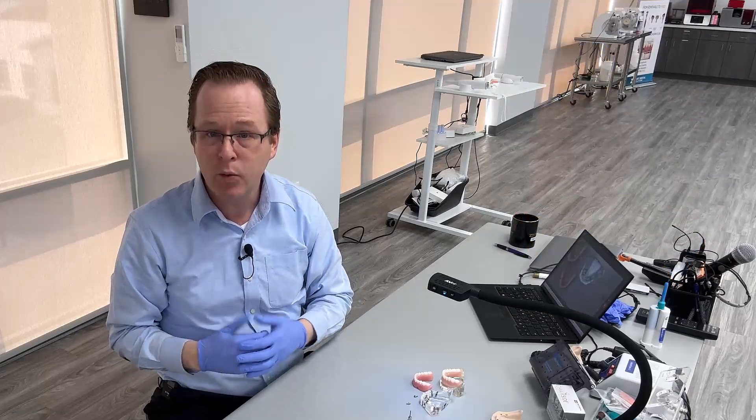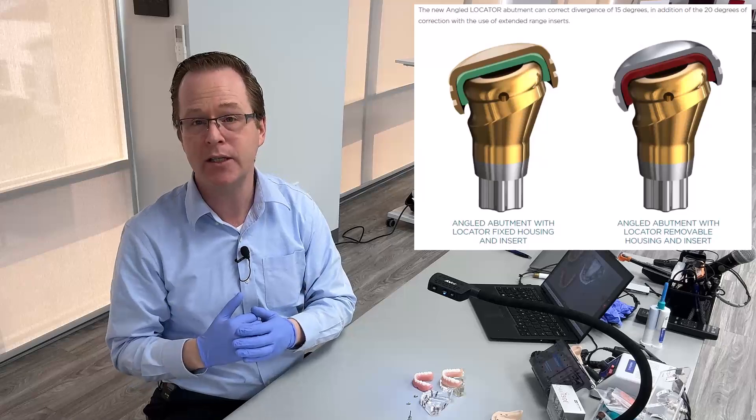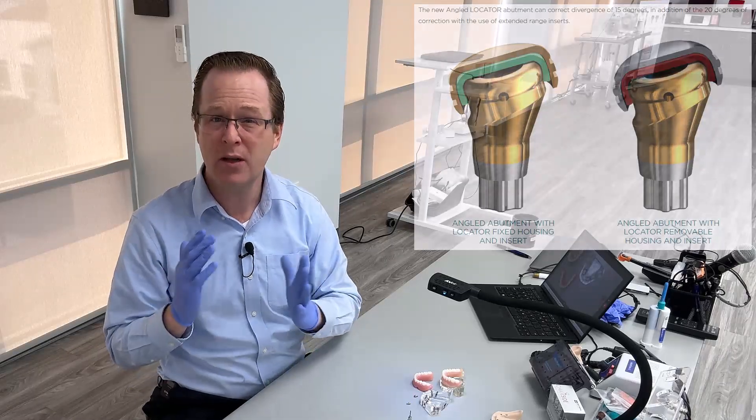With the locator angled, we can correct even more angulation than what we're used to by combining the extended range inserts plus that pre-angle 15 degree abutment. Talk about incredible.